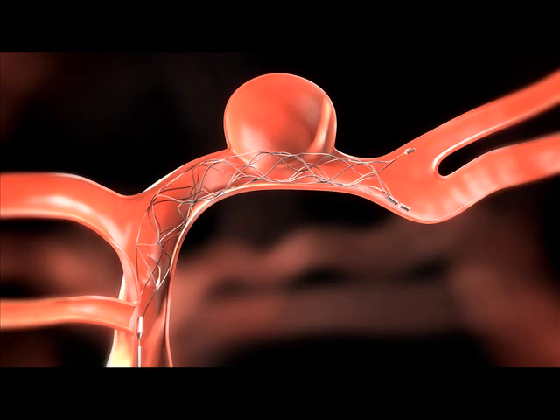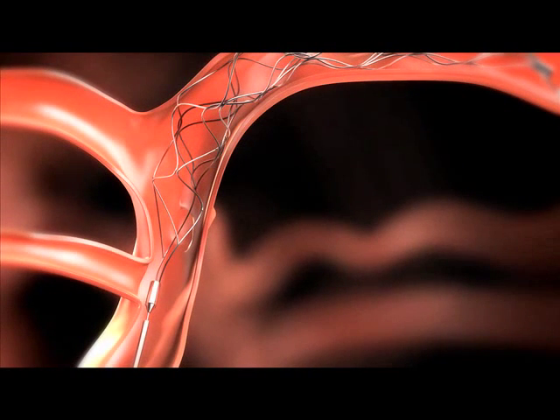A periodic acoustic signal and pre-detach indicator is lit on the Solitaire detachment system, which indicates the detachment of the Solitaire AB.